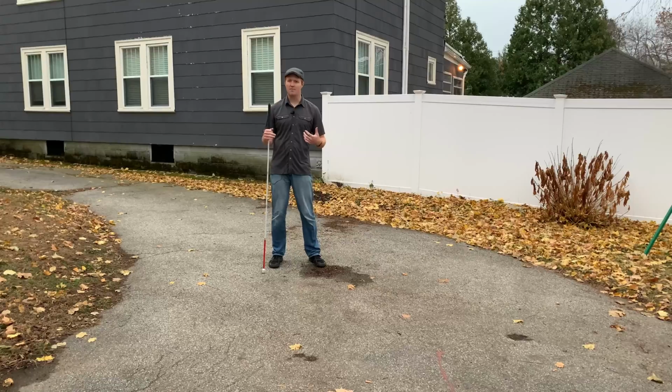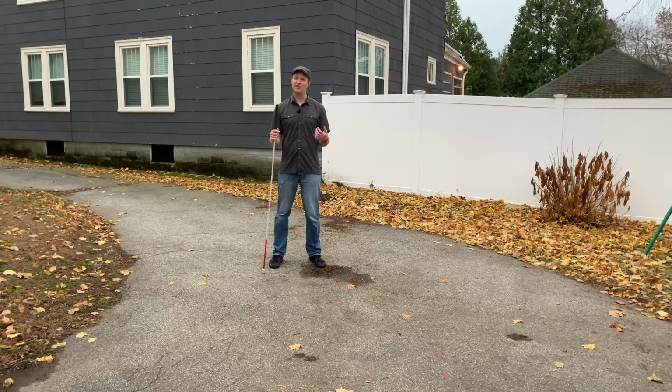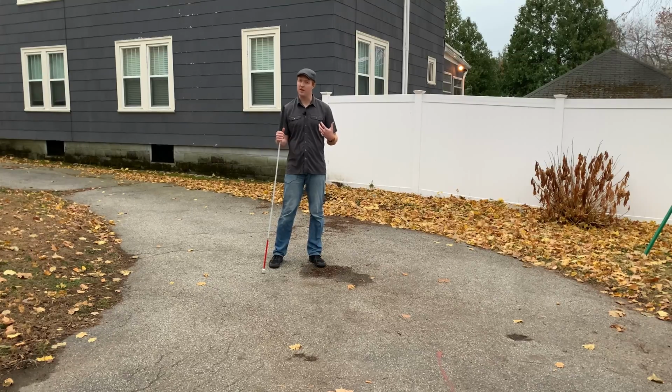The touch and slide cane technique is primarily used when doing 2-point touch. If you're a constant contact user, you probably won't use this technique very often, but if you use 2-point touch, this is a really helpful technique for locating those textural changes or subtle drop-offs. Now I'm going to do a quick demonstration on how to do touch and slide, and then I'll give you a real life example of how useful it can be in certain circumstances. For my demonstration here, I'm just using a big asphalt driveway in my backyard.